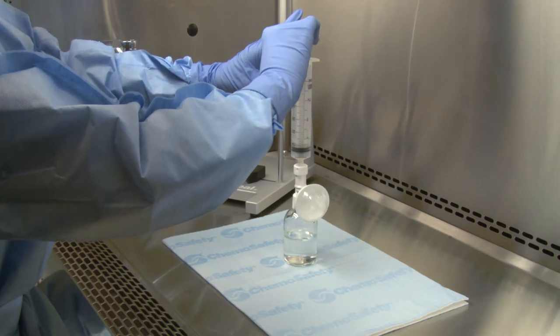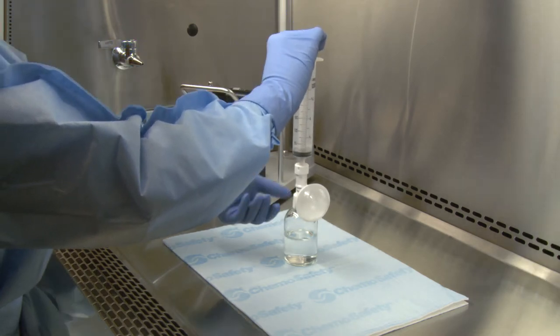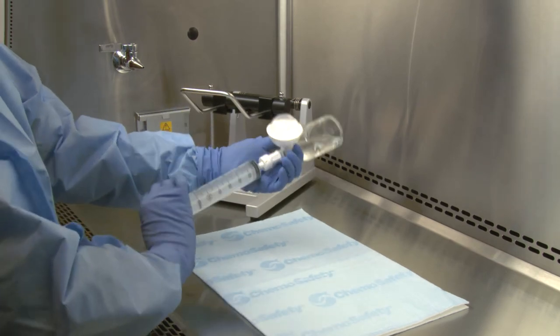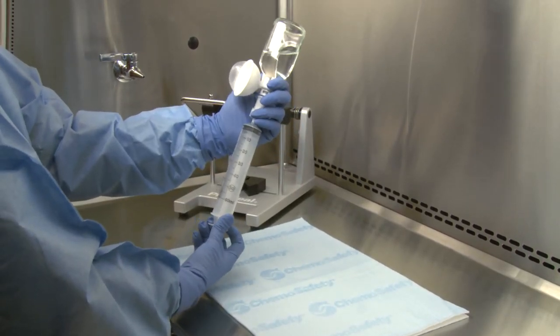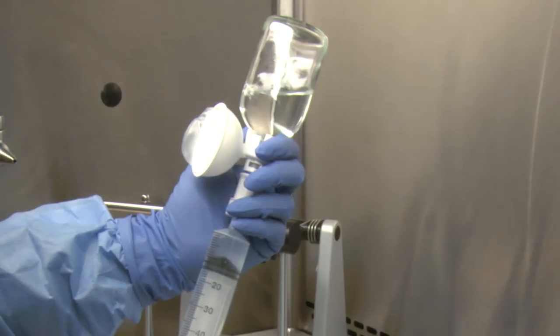If reconstituting, follow the drug manufacturer's package insert. Invert the system and aspirate the drug into the syringe unit. The expansion chamber will now deflate.